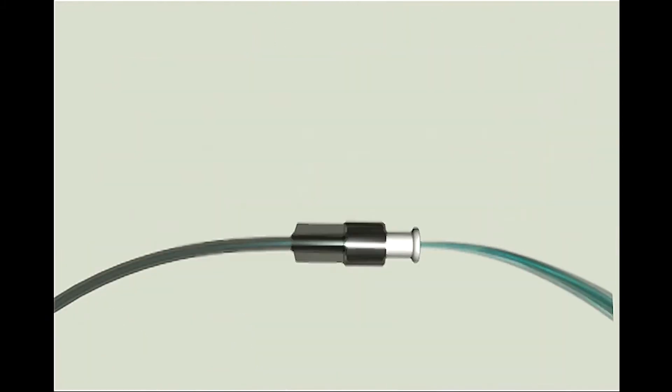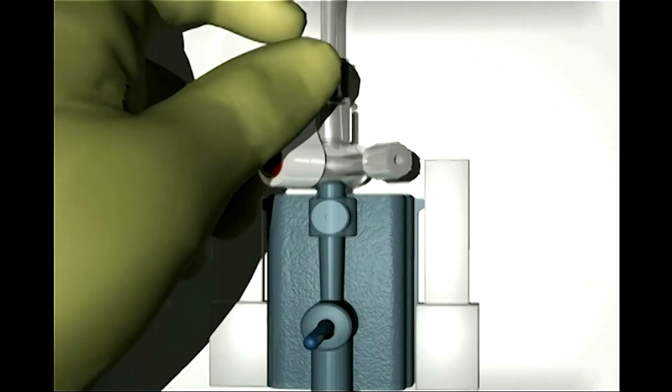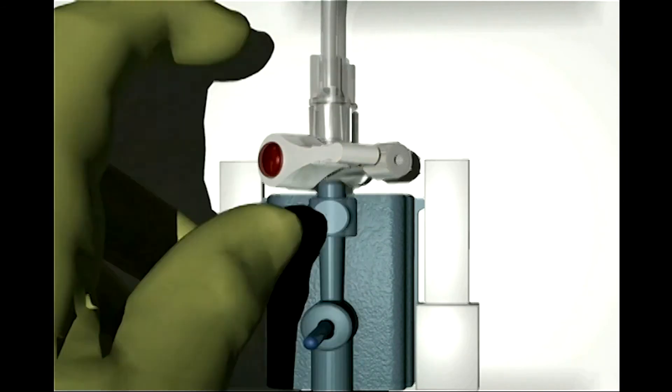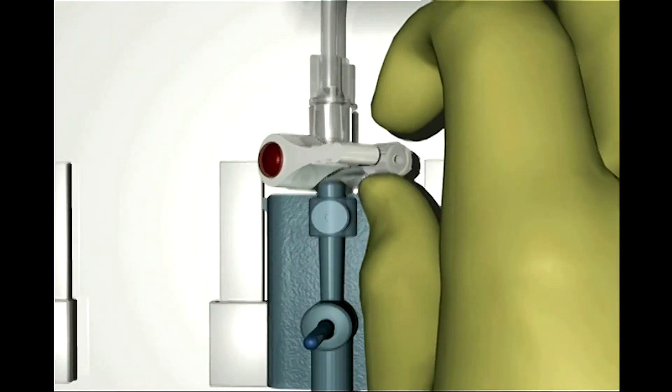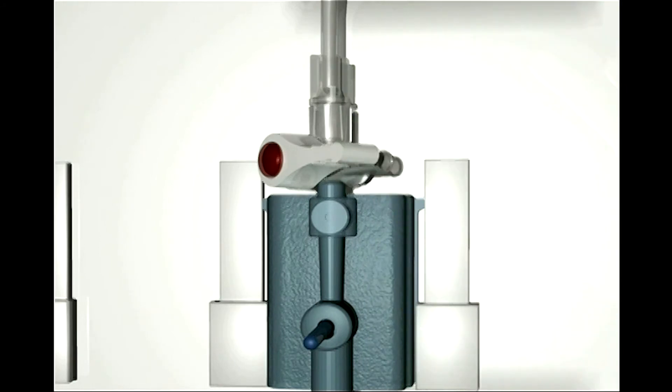After removal of any residual bubbles, connect the TruWave transducer to the bedside physiologic monitor for calibration. Step 6: Replace all the opaque vented caps on the side ports of the system stopcocks with non-vented caps.